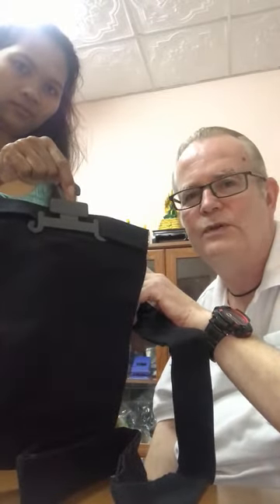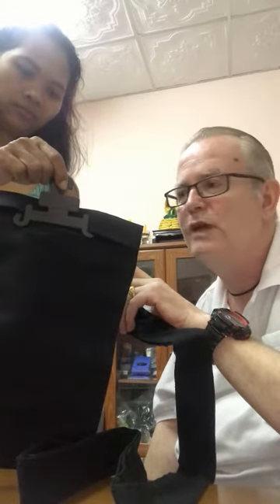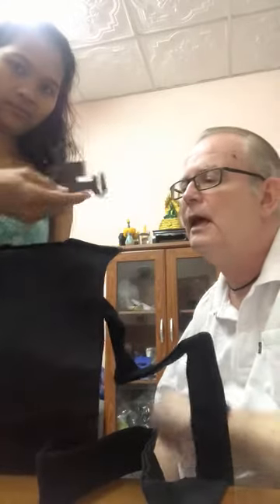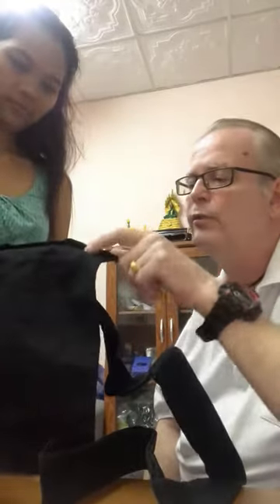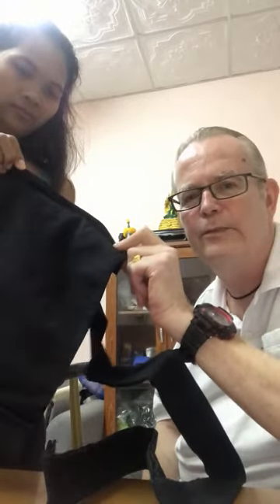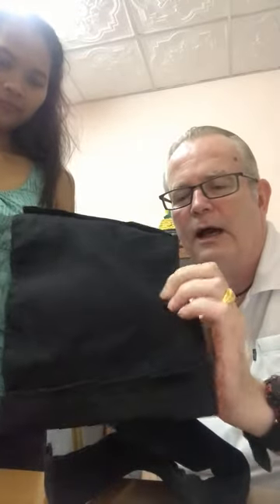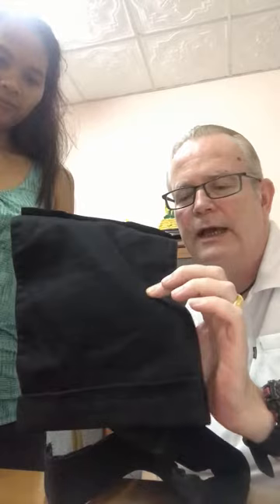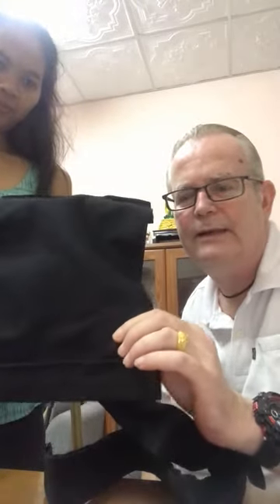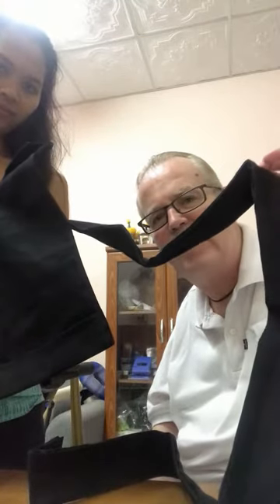I choose not to use the hanger because I like to have it either lying on the floor or in a bag when I'm travelling around on my scooter. Everything is hook and loop, so it's very easy but firm to use. The material is very strong — 100% cotton. It's not too flimsy because we don't want it folding up or riding down the pipe.